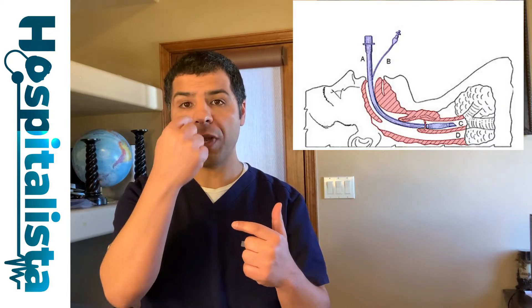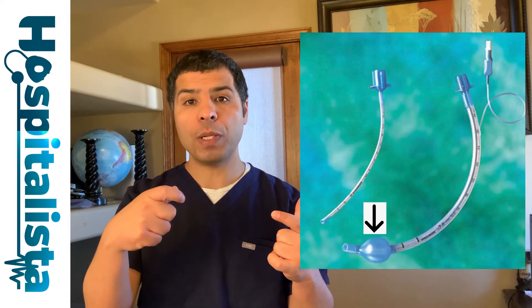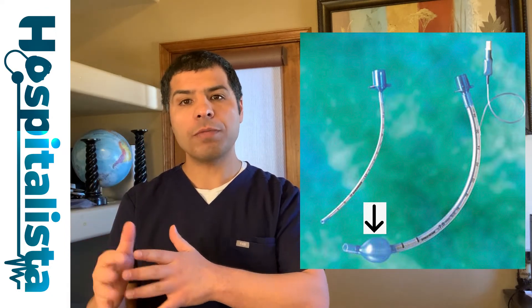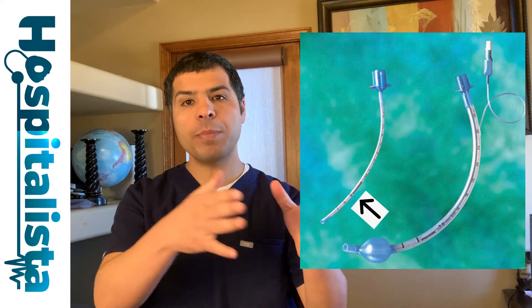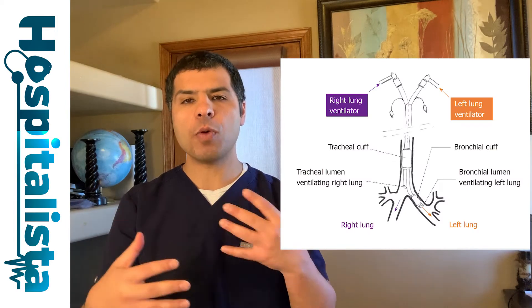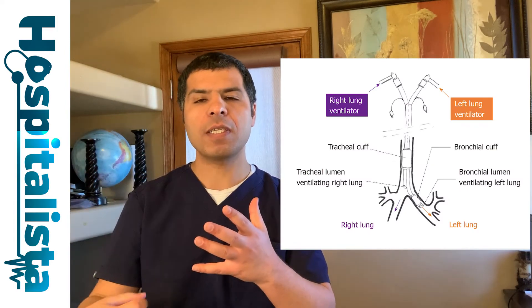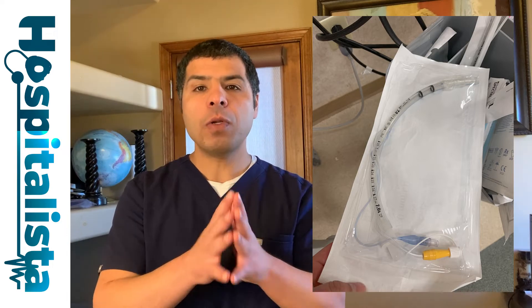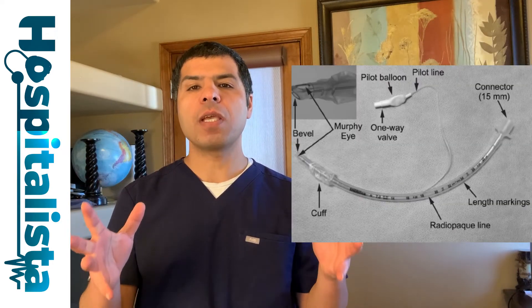Now let's talk about the endotracheal tube itself. Endotracheal tubes can be either oral — the most common — or nasal. Nasotracheal tubes can be cuffed, meaning they have a cuff or balloon to prevent air leak and aspiration, or uncuffed, which is used mainly in the pediatric population. They can also be single lumen or double lumen; double lumen tubes are used mainly in thoracic surgery when one lung needs to be deflated. The most commonly used is the single lumen cuffed oral endotracheal tube.